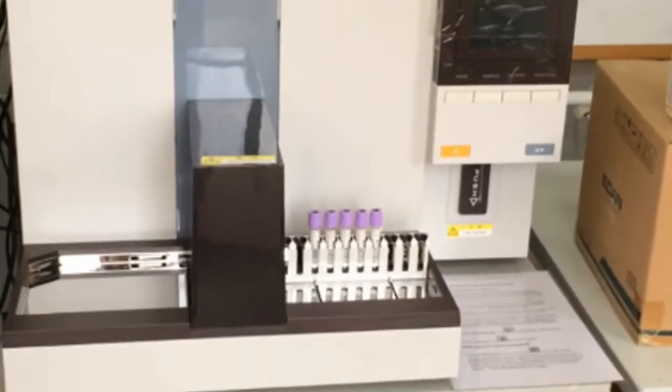As you're seeing here, we have the analyzer and the autoloader and also computer.